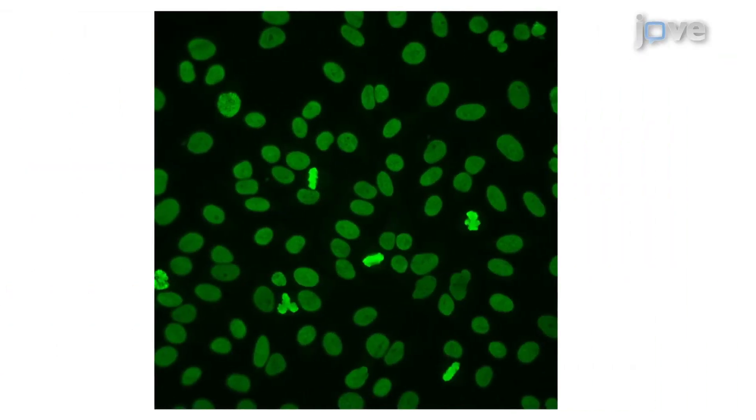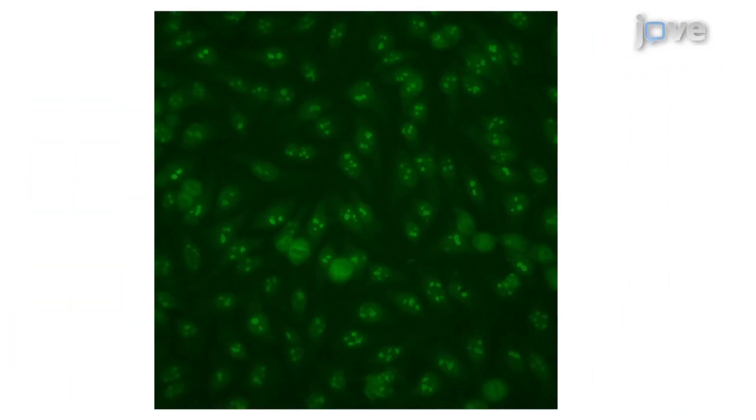Ultimately, the presence of ANAs can be used to aid in the diagnosis of connective tissue diseases.